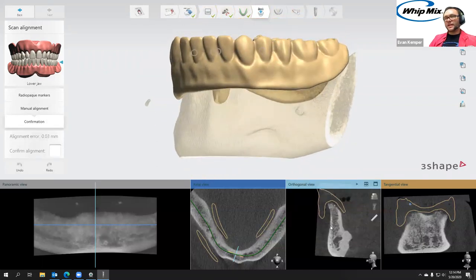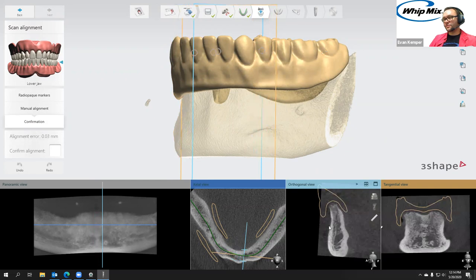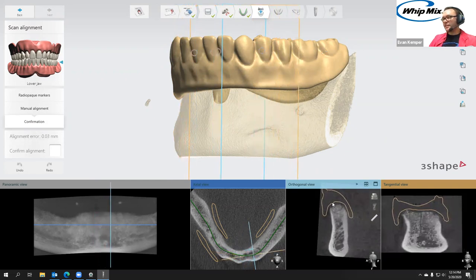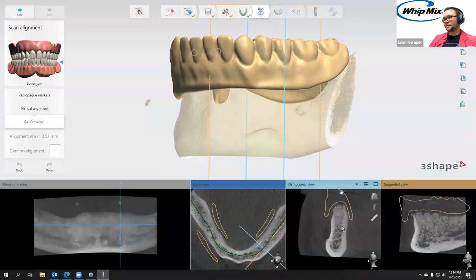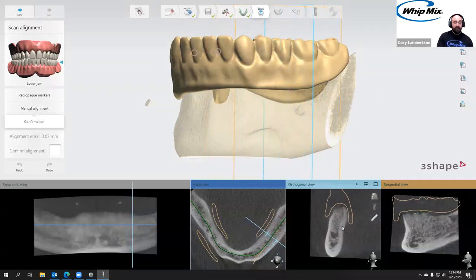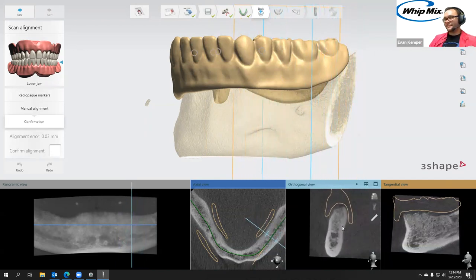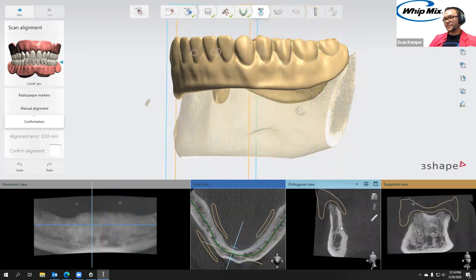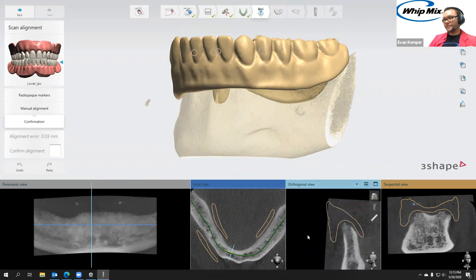All we want to do here on the manual alignment is scan through these different slices by holding Control and scrolling the mouse wheel. If you saw bone protruding through the denture surface, you'd know something's off about the alignment because obviously this is the soft tissue surface — it can't pass through there. That looks good. If you did want to manually adjust it, you just left-click in one of the orthogonal or tangential views and actually move it. But we are not going to move it because this confirmation is good, so then I'm just going to check the confirmation checkbox.